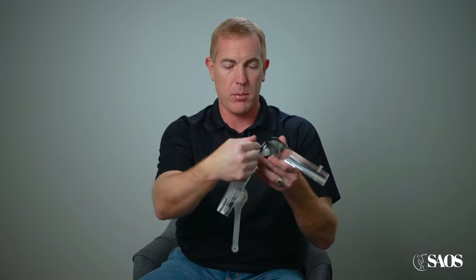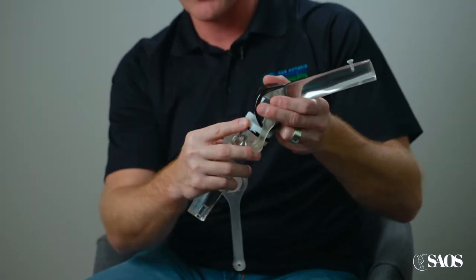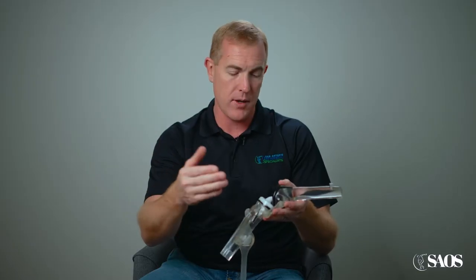My preferred knee implant is one from a company called Smith & Nephew, and in large part it's because they're the only company with this black metallic surface. It's actually an oxidized zirconium — they call it Oxinium — but it behaves more like a ceramic, so when you put it on this polyethylene spacer there's going to be less wear over time.